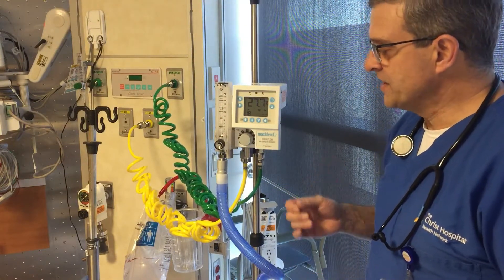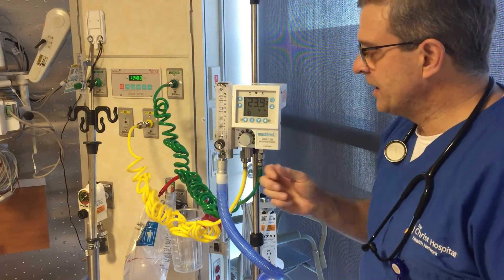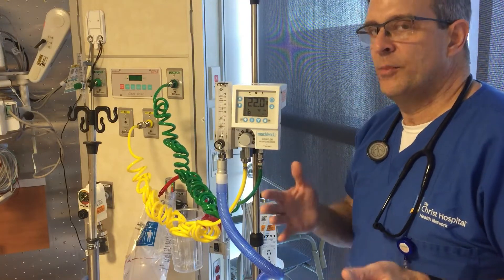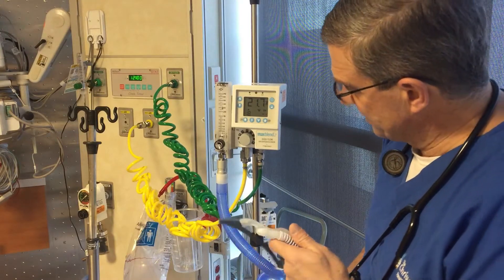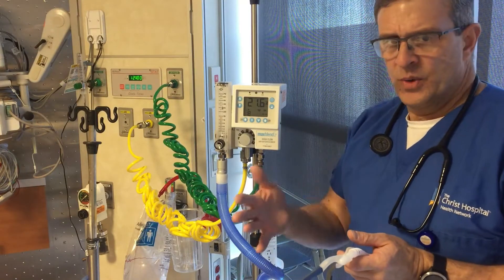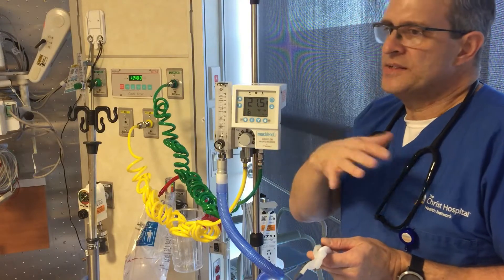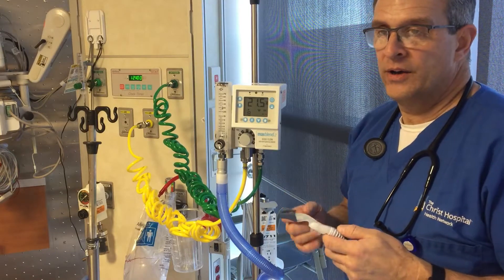This is a really great oxygenation device when a non-rebreather or 100% on a different device isn't quite getting it. The added flow builds a little bit of CPAP pressure to help oxygenate and keep the airways open. We can also use this alternating with a non-invasive system like a mask bi-level system. If that's not tolerated, you can use this and switch back and forth — sometimes patients thrive better on one over the other.